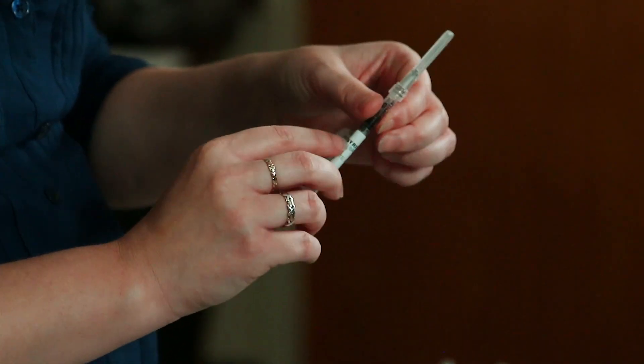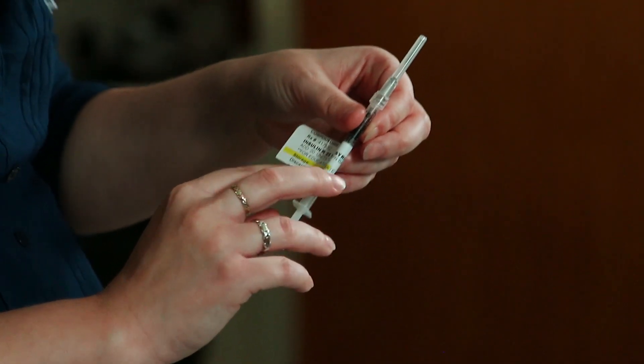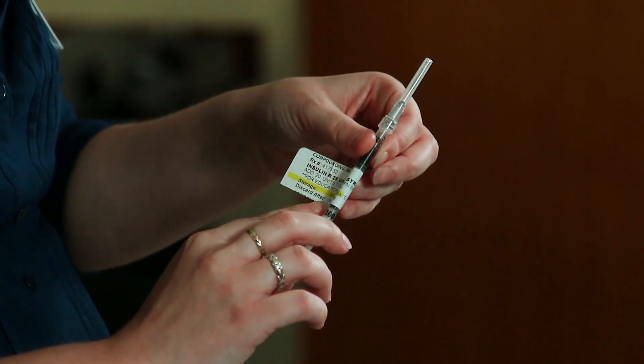Once again, you want to make sure that it's your name, the correct medication, and it is not past the discard after date.